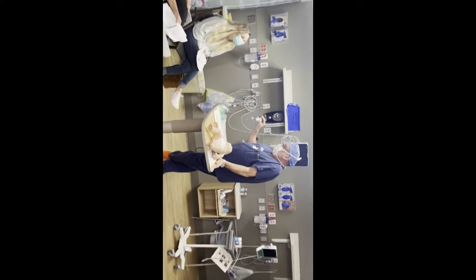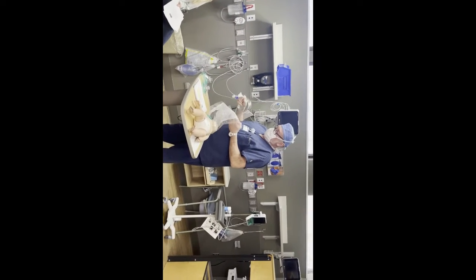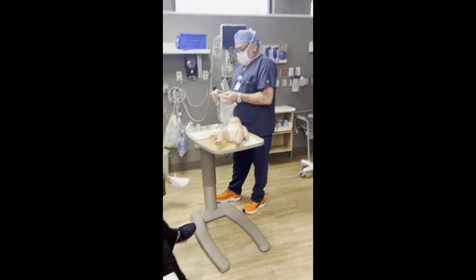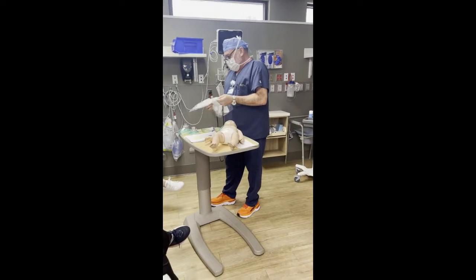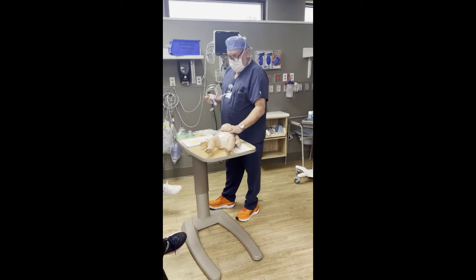Know what this device is? That's where you go. Baby system, right. It comes in a bag for us back there. When we bring it to you, it's already in use. Its official name is the flow inflating resuscitation device. It's a fancy way of saying it delivers oxygen to the baby, right?